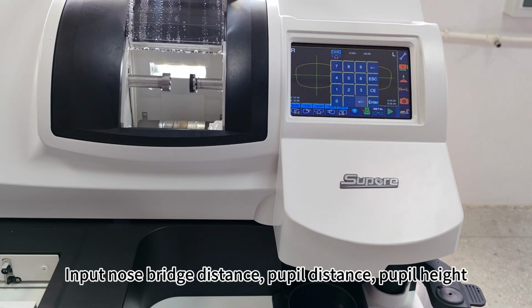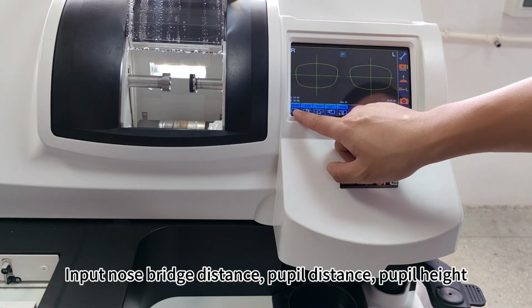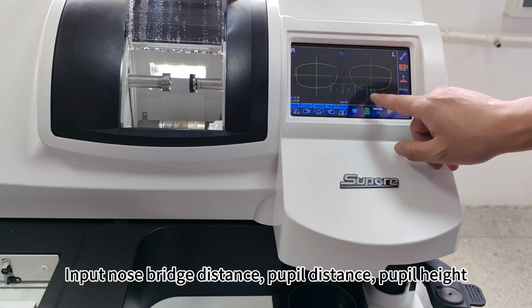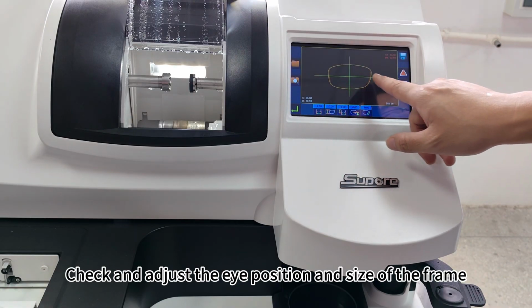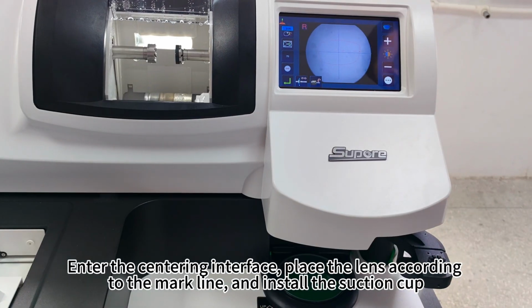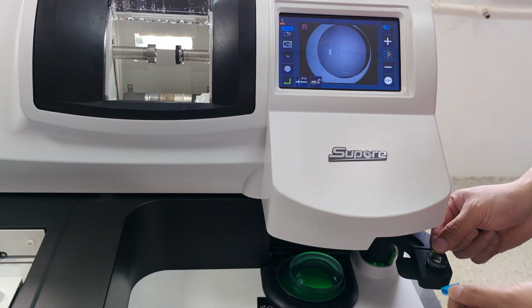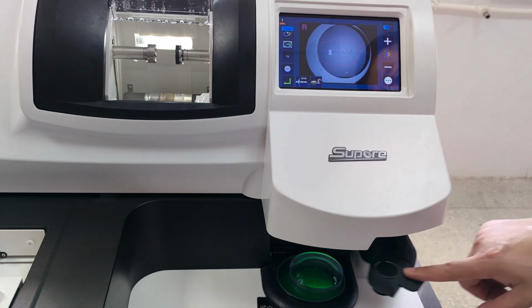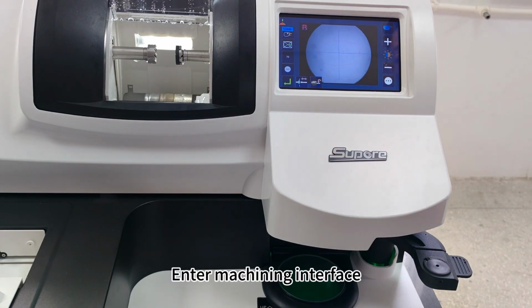Input nose bridge distance, pupil height. Check and adjust the eye position and size of the frame. Enter the centering interface, place the lens according to the mark line and install the suction cup. Enter machining interface.